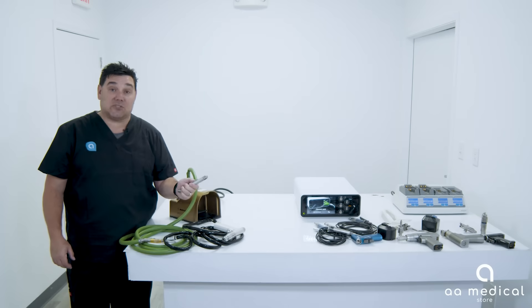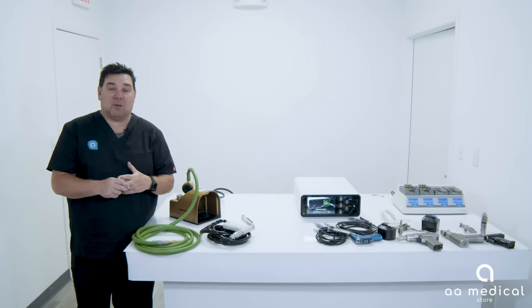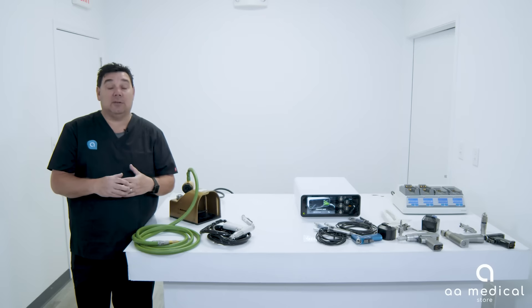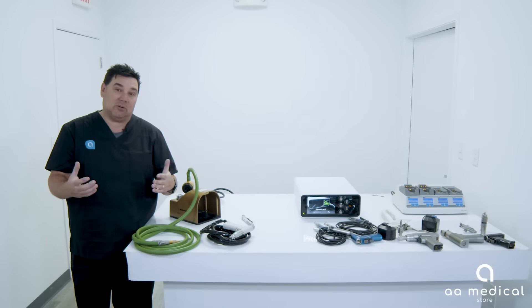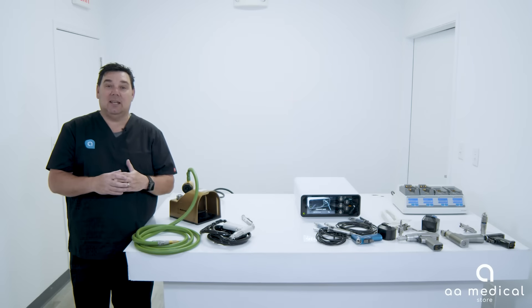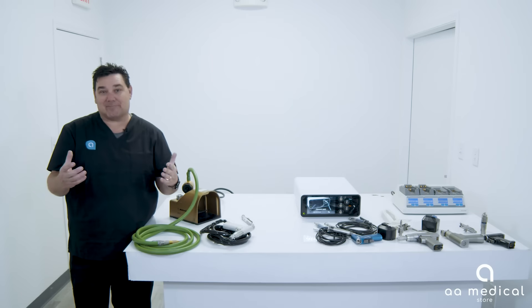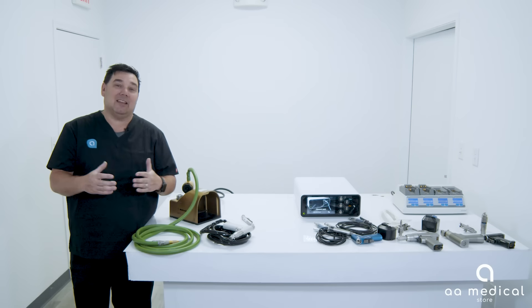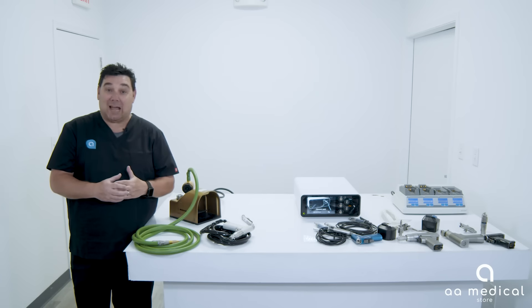With the Hall system you have the ability to use a saw or a drill for the nitrogen powered setup. To summarize: the nitrogen pneumatic powered system requires a nitrogen cord and a nitrogen supply. You must make sure the facility actually has the ability to run nitrogen — a huge drawback if you sell them the system and they don't have nitrogen, because the gas powered systems will not work without a gas supply.